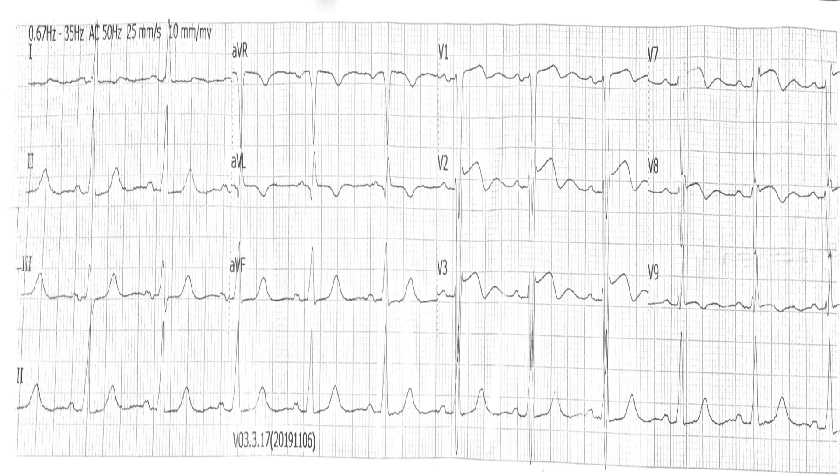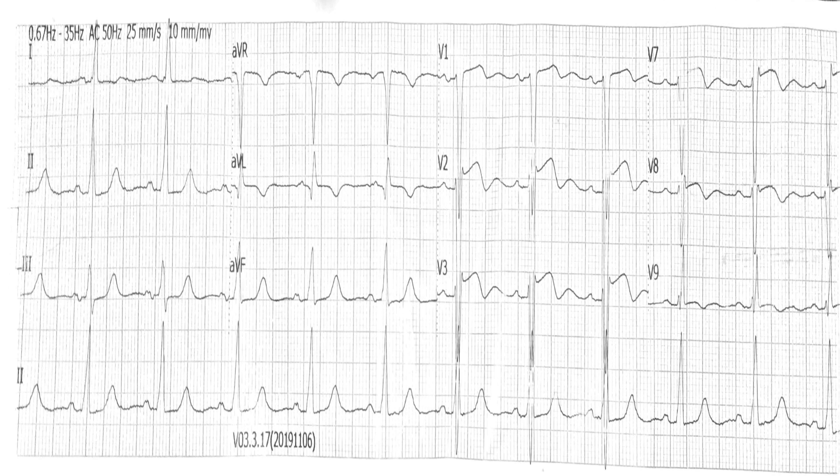Hello colleagues, today we'll be discussing a case of a 45-year-old male who presented with complaints of shortness of breath for the past few weeks. This was the ECG that was performed when he was seen. Let's see what positive findings we can identify on this ECG.